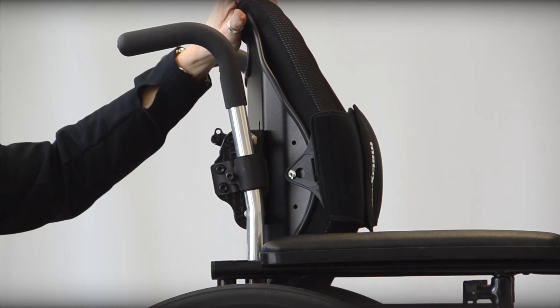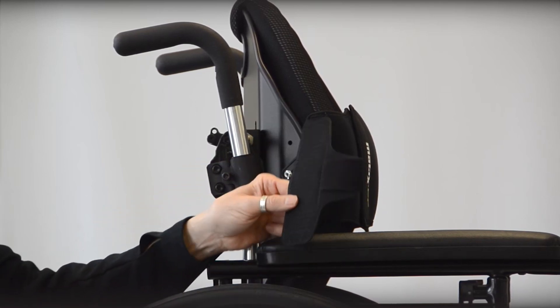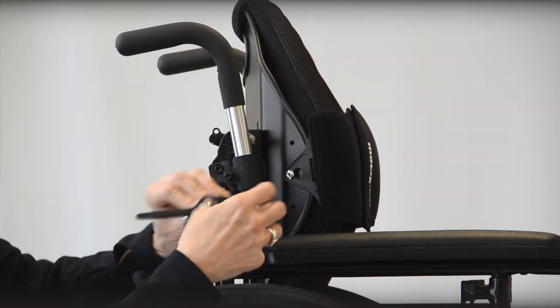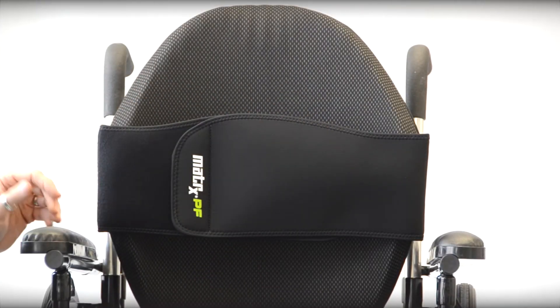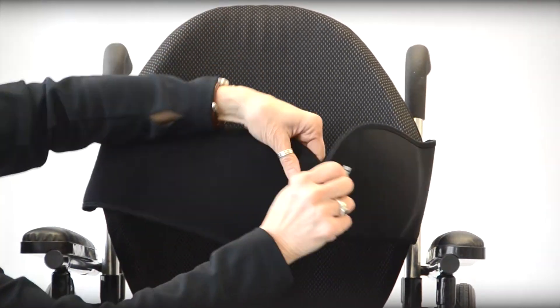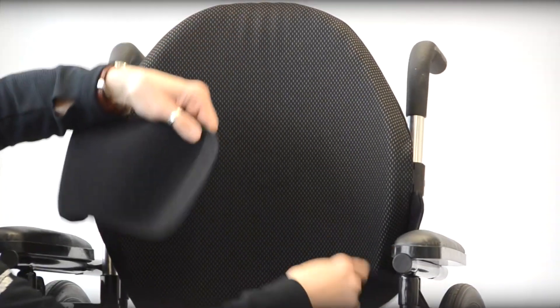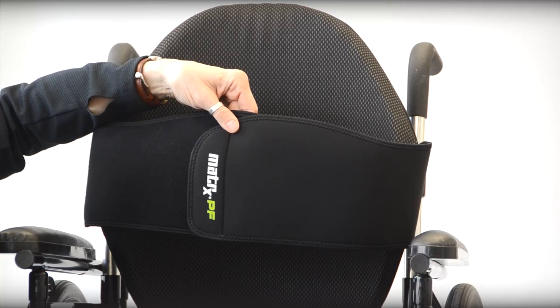Something that may be helpful for people with limited hand dexterity is what we call a quad release tab — a little thumb loop that can be added to any of the Posture Flexes. Now with the Posture Flex mounted, you can see how we can un-velcro this, and with that stretchiness you can have a tighter application or have it a little bit looser for somebody just to get a little bit of support and stability during a dynamic activity.